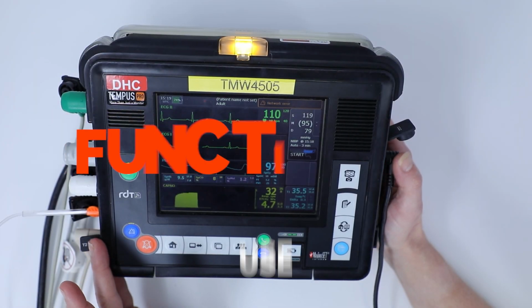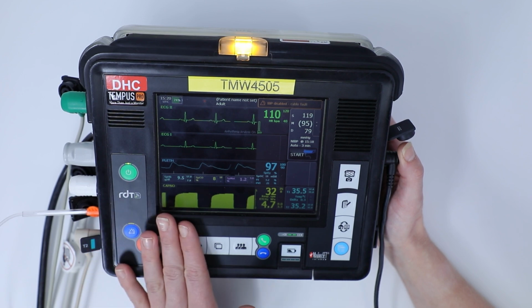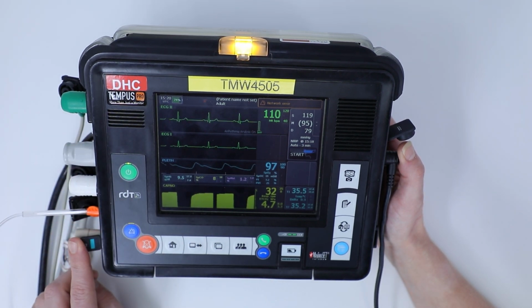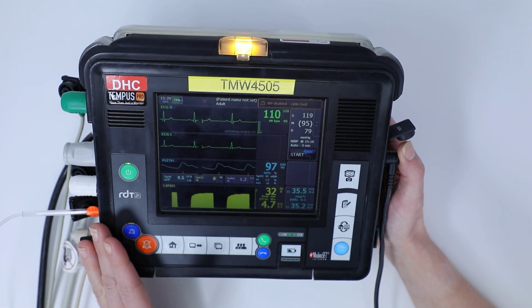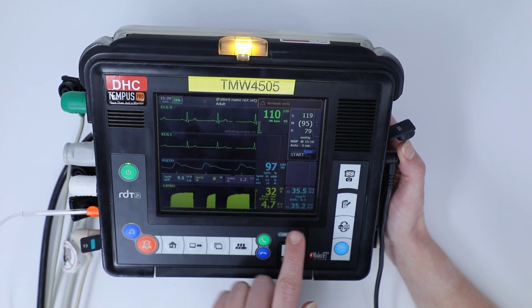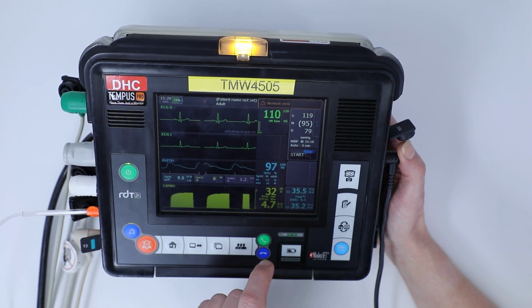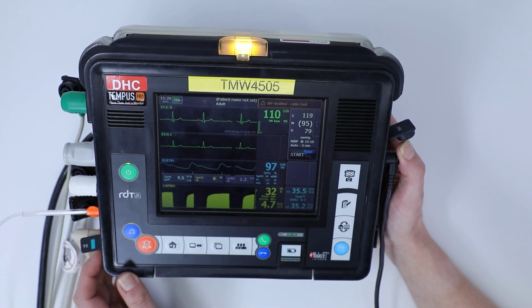Now we're going to take a look at the functionality of the Tempus Pro. So I've got the Tempus Pro set up here in patient demo mode, but you can see I've got all my consumables and leads connected as if it was connected to a patient. So I've got my ECG readings, my SATs readings, my capnography, I've got my patient temperature, respiratory rate, and my non-invasive blood pressure if I choose to use it.